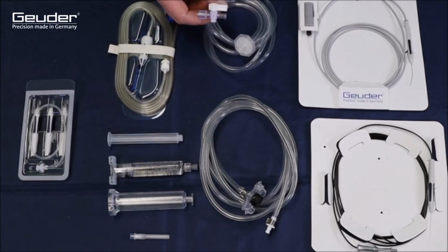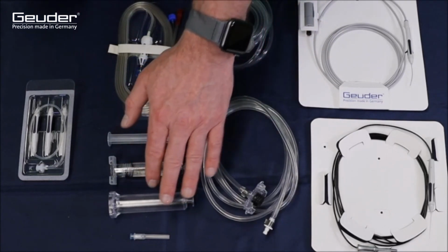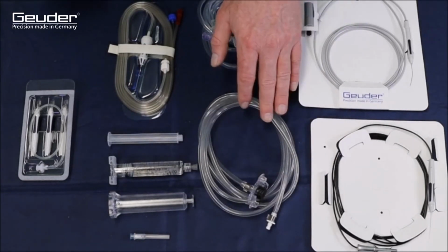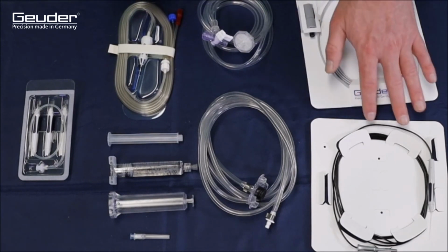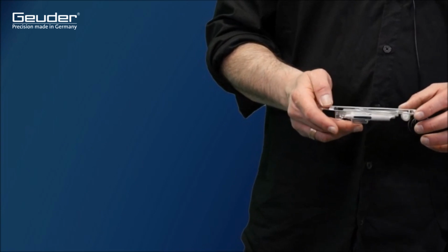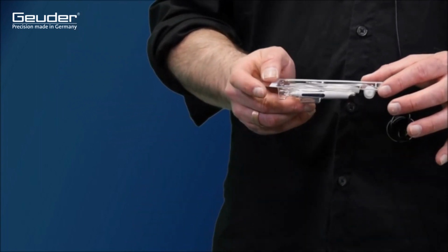The air injection set with air filter and pre-connected three-way valve can be used to select the medium required for introduction into the eye. The oil injection system, consisting of a plastic cartridge and hose system with device connector, is used to inject silicone oils. The overview is completed with the laser fiber for use with the Endotron 532 and the light guide for operation with the Xenotron 3 or the LED light source Solia.